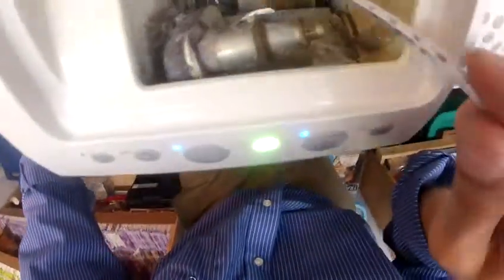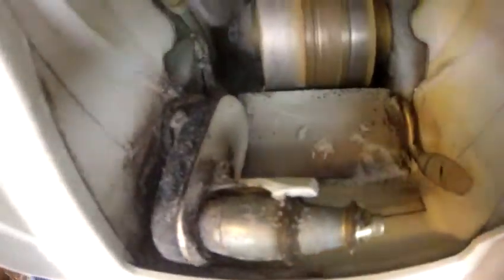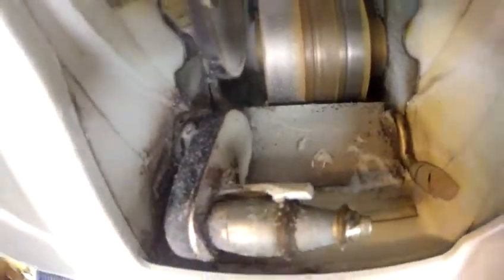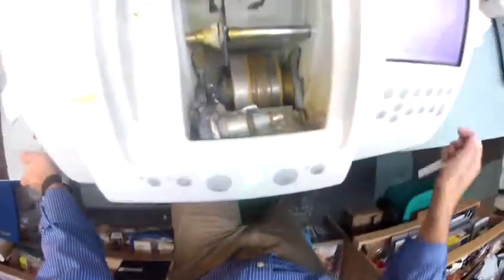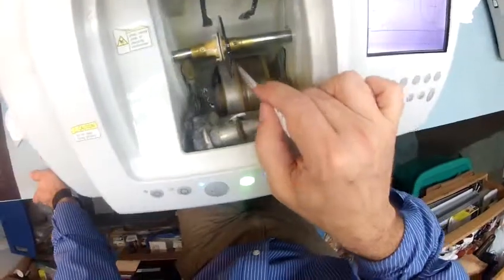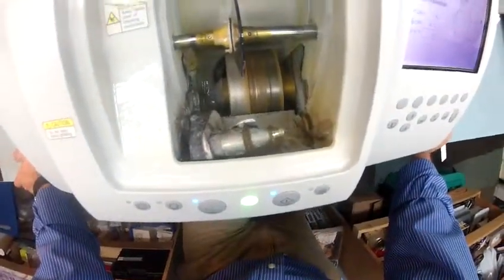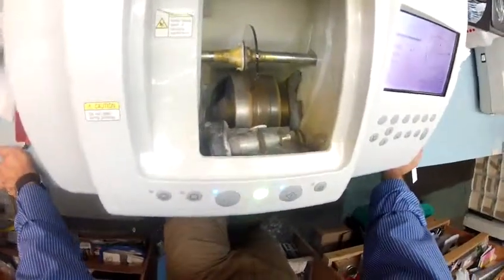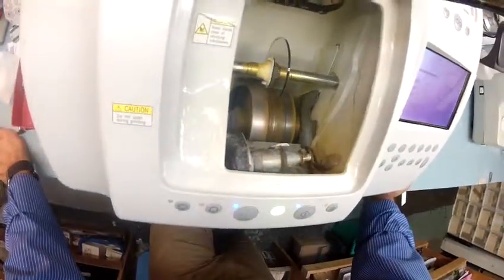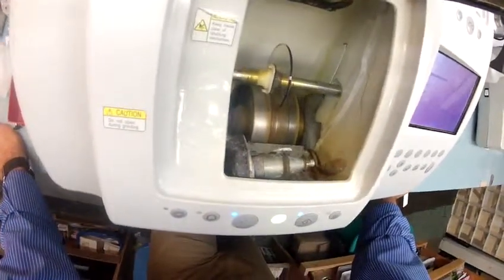The actual cutting wheel is down here on the bottom left — that lighter color wheel that's like a heavy grit sandpaper. That's going to grind away your polycarbonate material until it's the final shape. And this wheel in the center with that channel, that's what's going to put the bevel onto the lens so it stays inside the bevel of the frame. I will have to close the door due to the sound, but I just want you to see as your photochromic transitional gray lenses touch down on the cutting wheel.